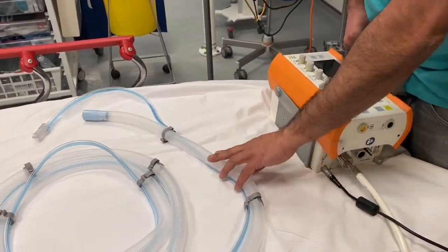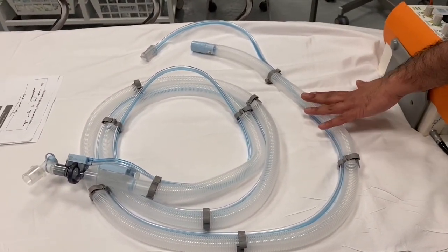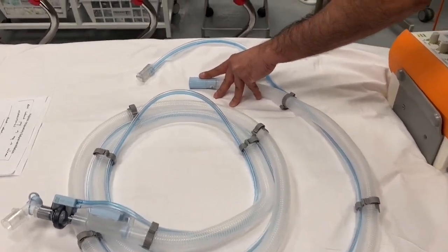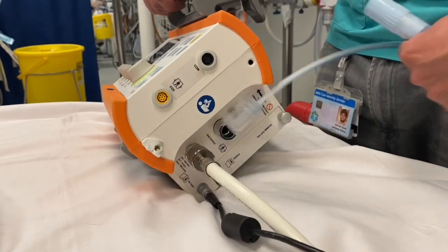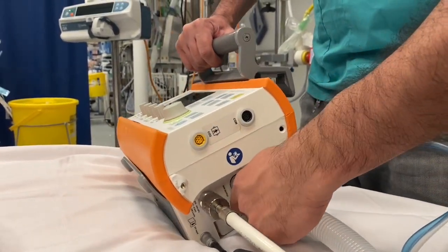The next thing that we need will be our adult disposable tubing. This comes in a pack but we pre-opened it just for the sake of this video. The first port is where the gas is delivered — this plastic port in light blue — and we plug it in here. Check that it is secure.